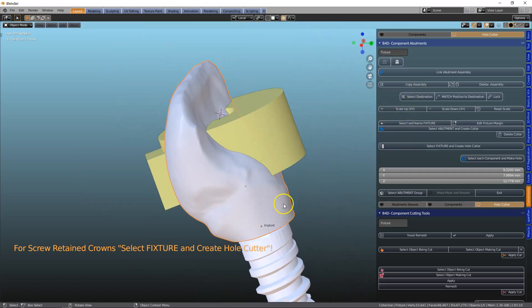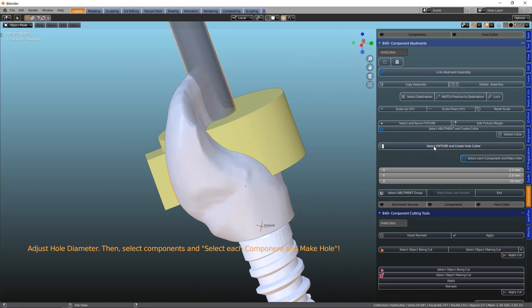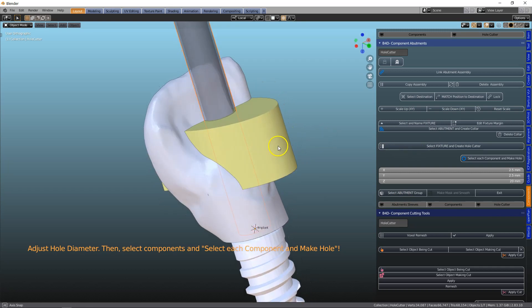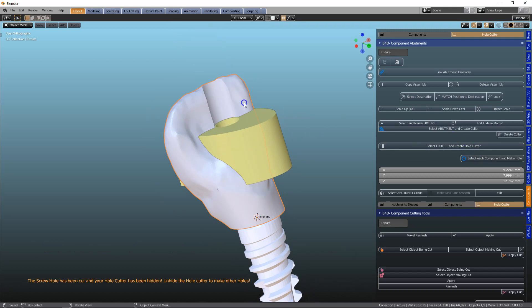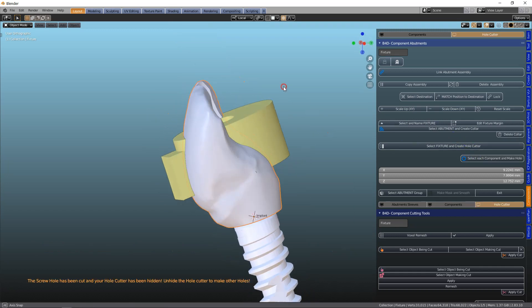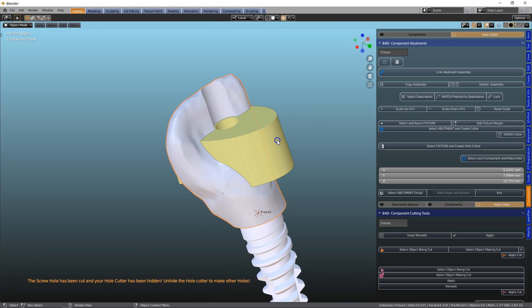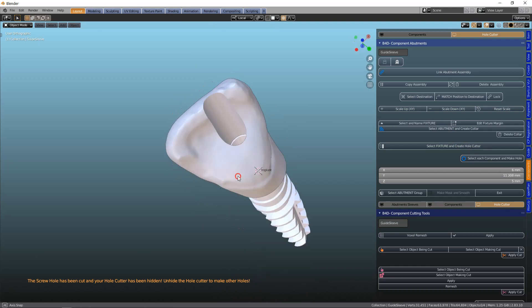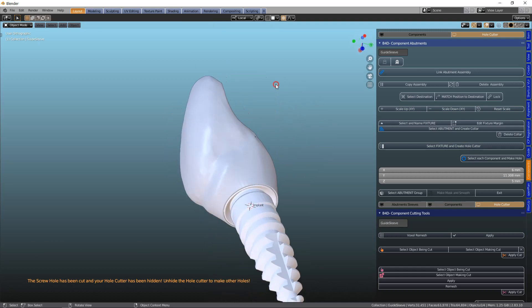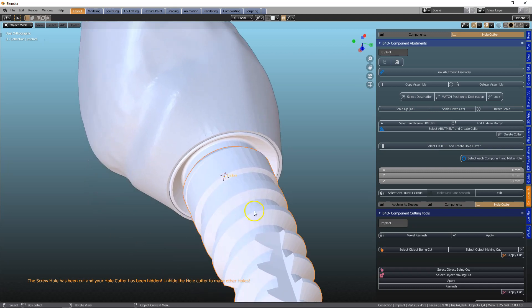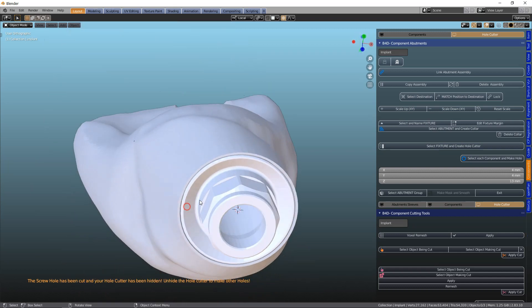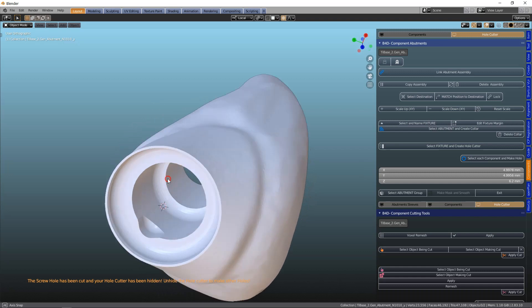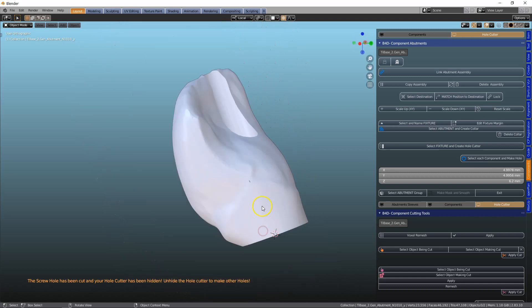Let's make a hole going through this tooth. So with it being selected, we're going to cut a hole straight through there. So this is our implant tooth. Let's hide this. Perfect.